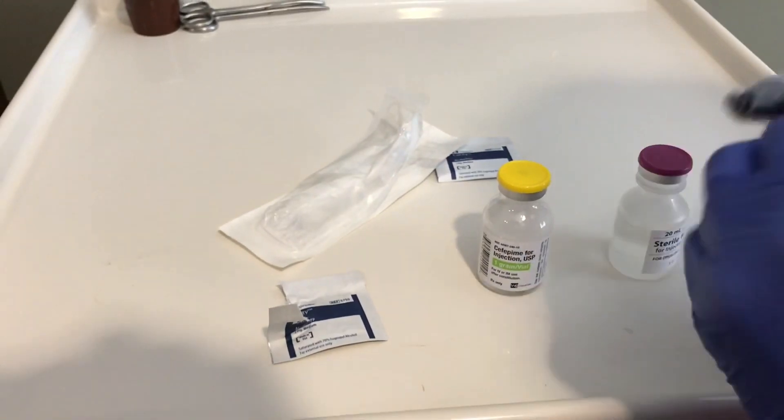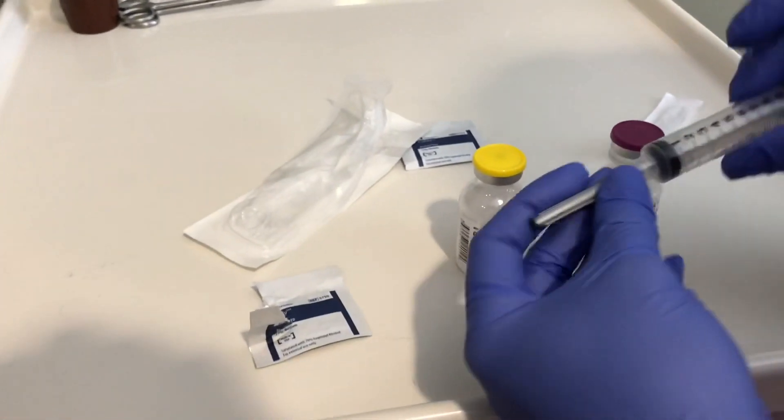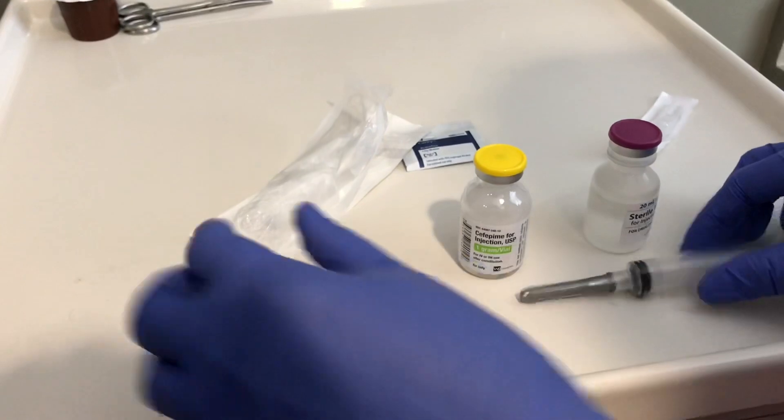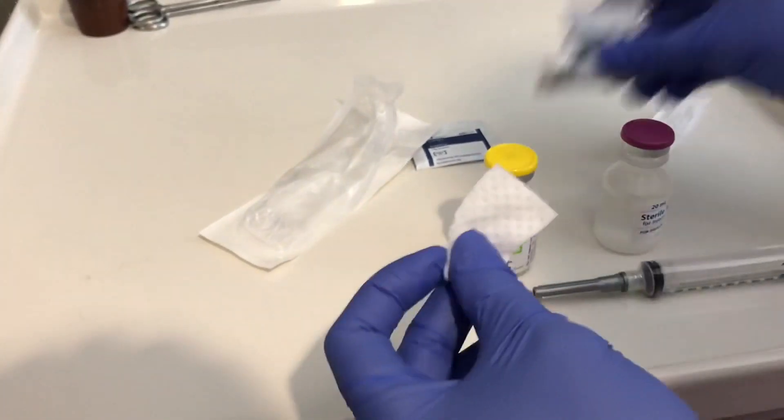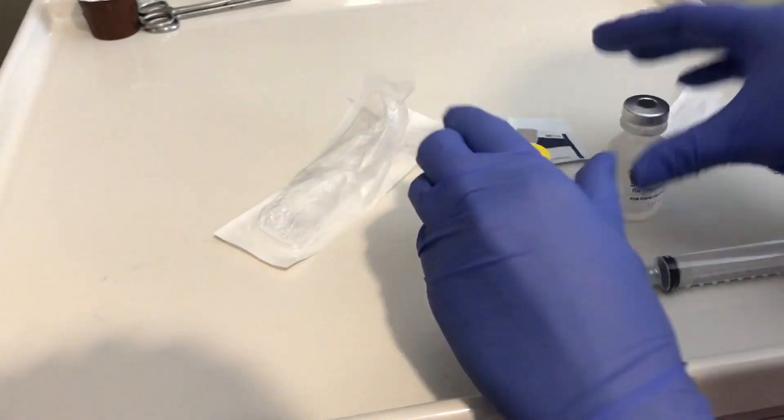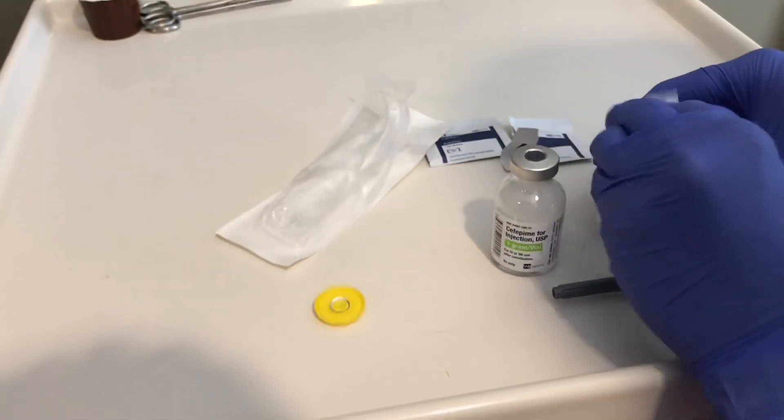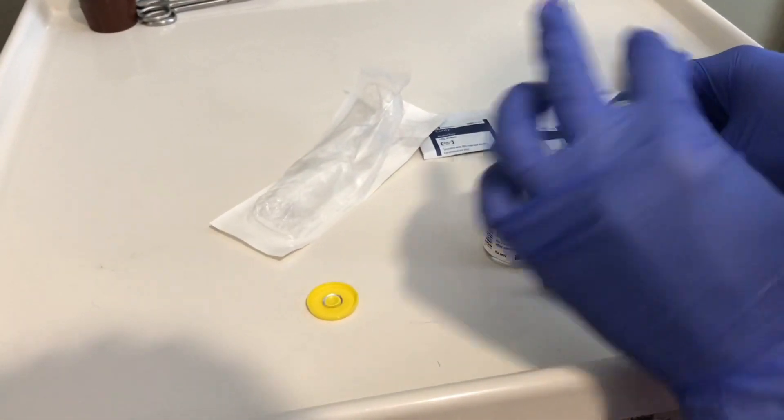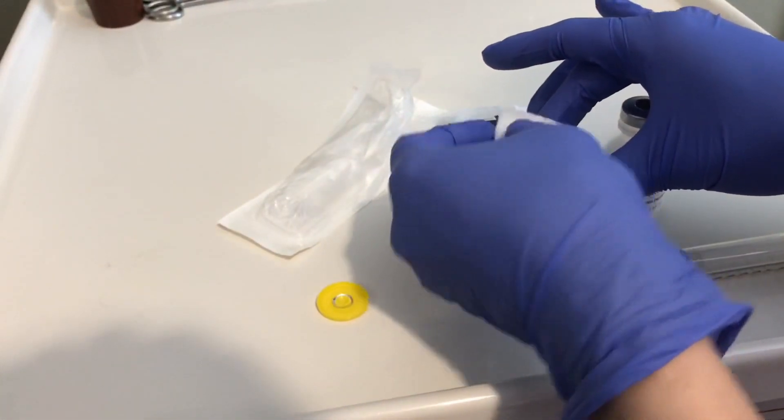Don't be fondling around. Connect that, pop your caps open, swab them, flip your alcohol swab, swab the other one.